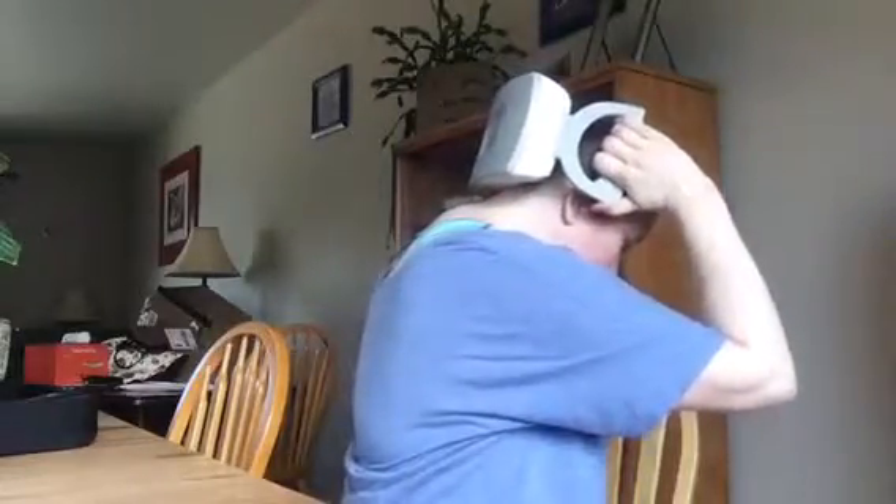I'll cradle the back of my head, put my head down, and deliver the treatment. That big thump — I thought at first it was going to be horrible, especially during migraines, but it isn't as bad as I thought. Once you're doing it every day for prevention, you really get used to it.